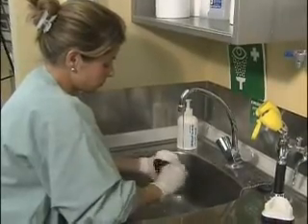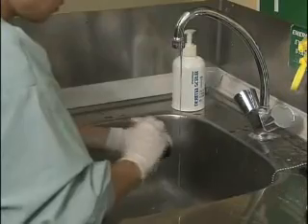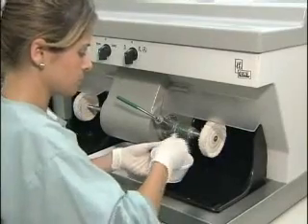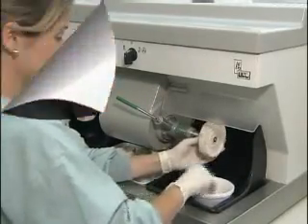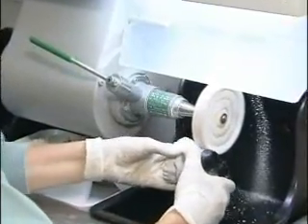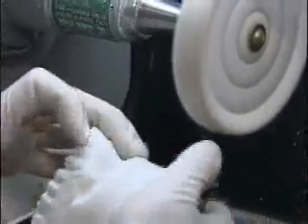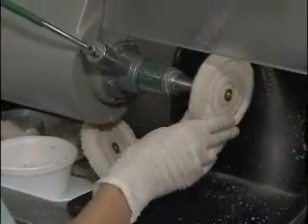In order to clean the model, start by using wet dry sandpaper on the models. Next, you want to polish your models so they can be presented. Start by using pumice. Then shine the model using Fabuluster.